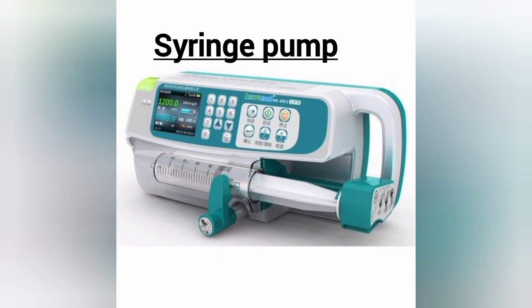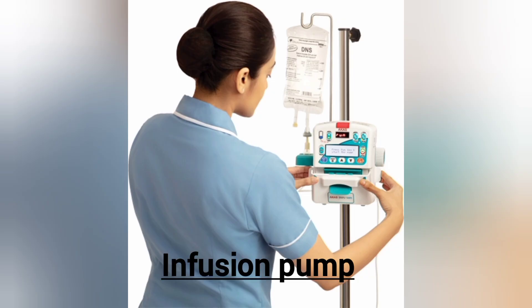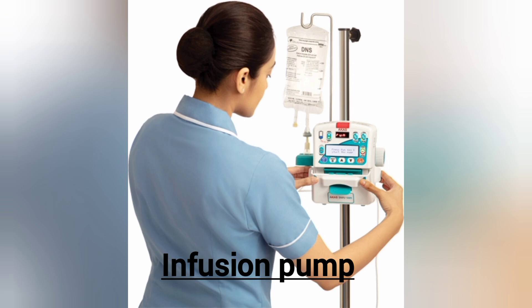The seventh equipment is the syringe pump. Most ICU patients require continuous dosage of medication with high precision, so a syringe pump is used. Then the infusion pump — for precise dose and speed of medicine through saline bottle, an infusion pump is used.